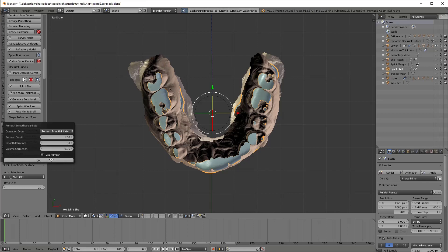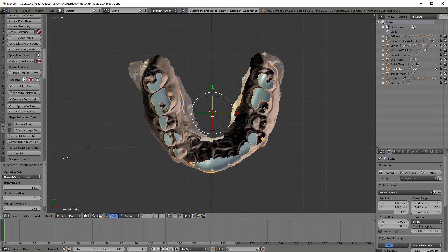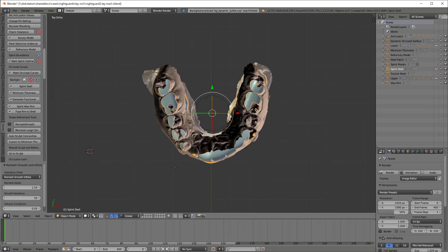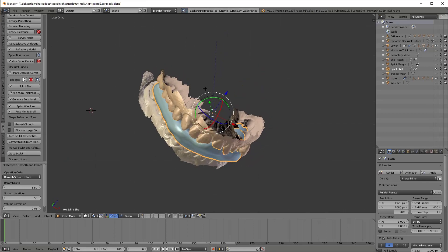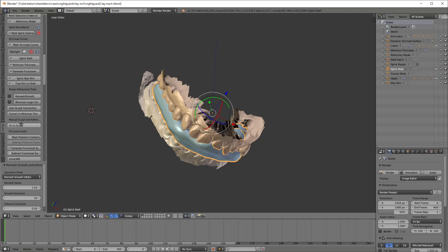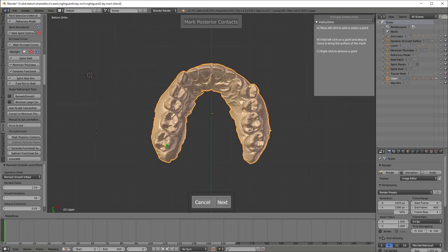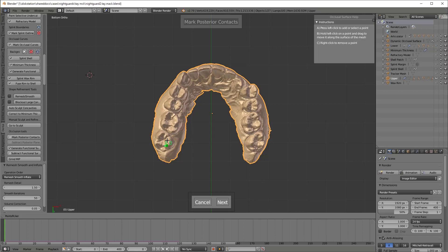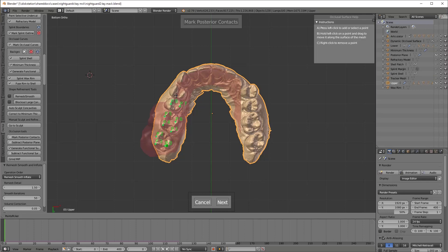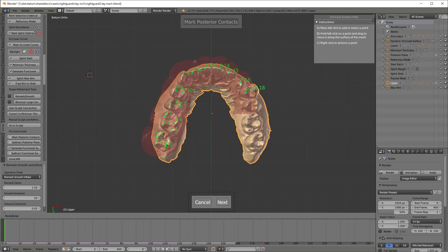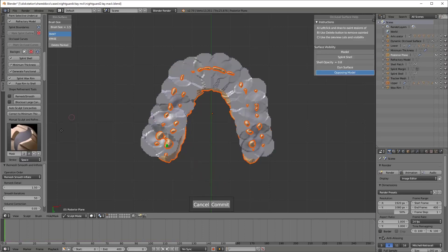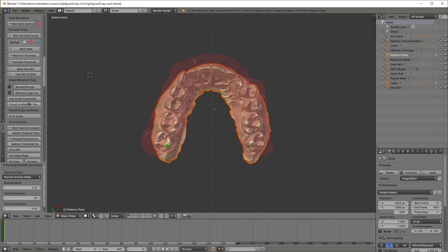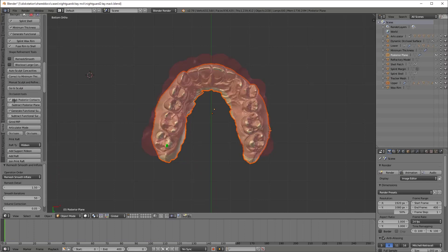So I have used those boundaries to make our wax rim or our flat plane. We've merged it with our splint wrapper. And then we're going to go ahead and mark out our contact teeth. This is one of the more tedious steps. You have to click. I think margin making and contact marking are the two things that are the most tedious in D3 splint. I think D3 splint is also unique in making this too. But there's a lot of power in it potentially for advanced uses as well.